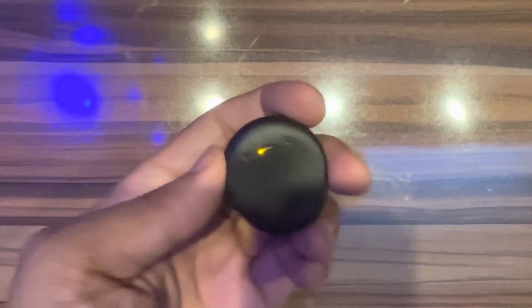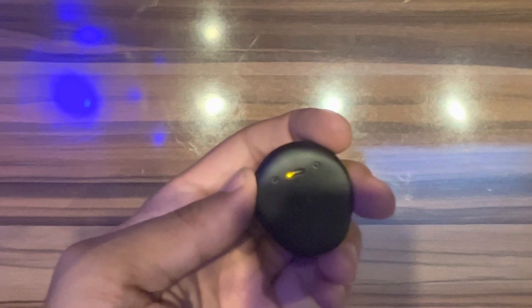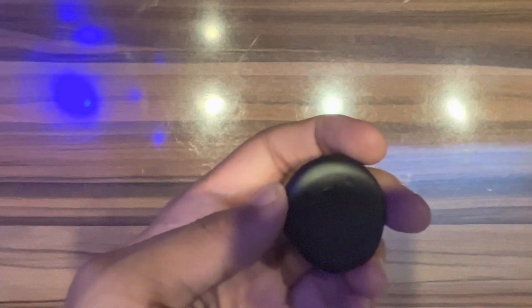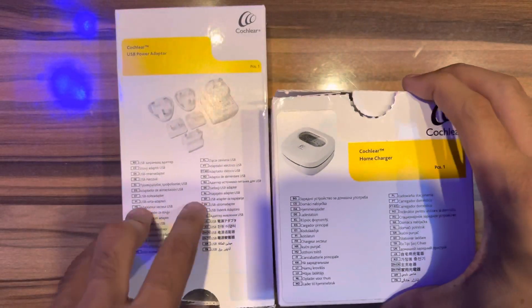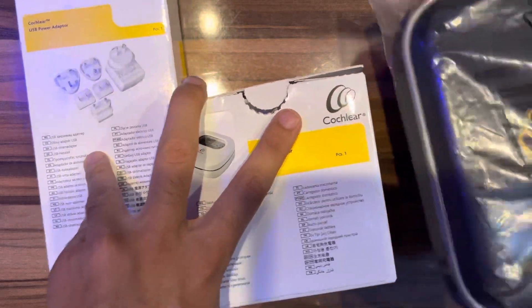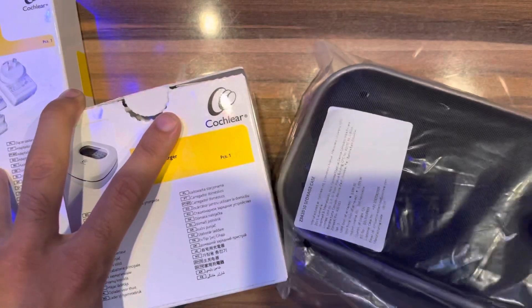Let's learn how to turn it off and on. Double tap to turn on, double tap to turn off. It's on. This is a USB power adapter — you will get a different power adapter with your sound processor.